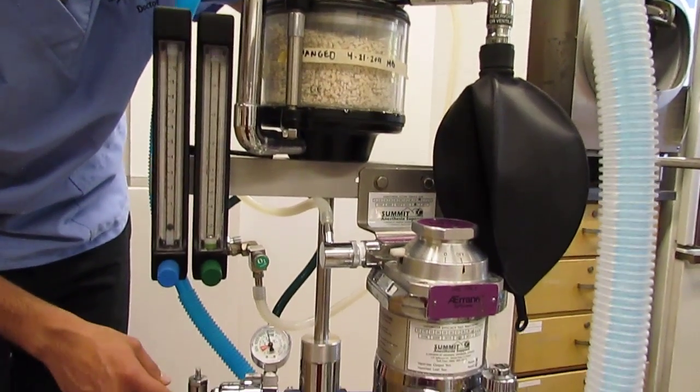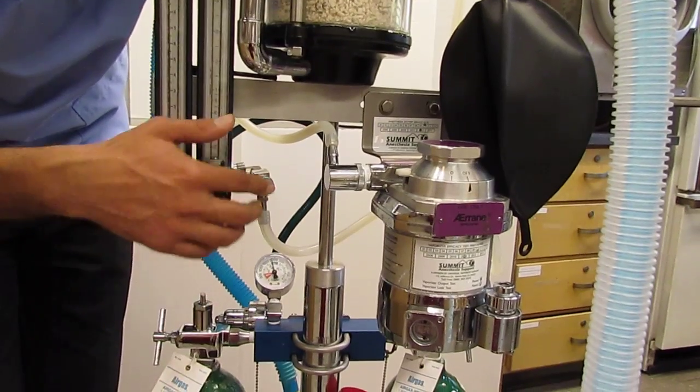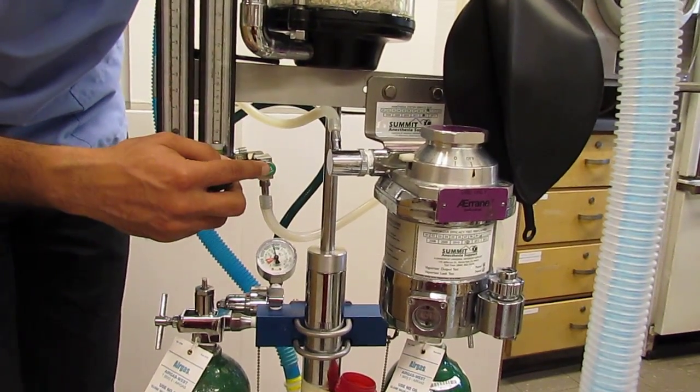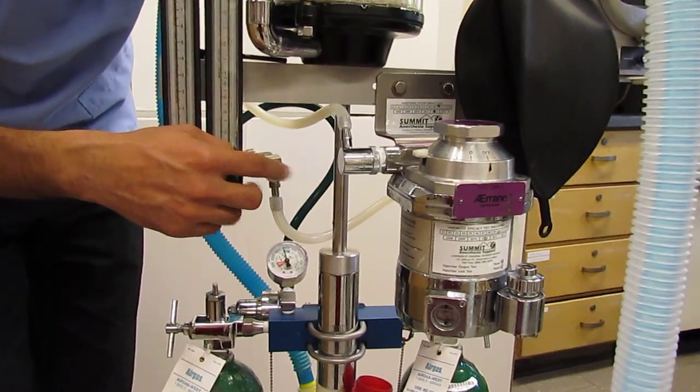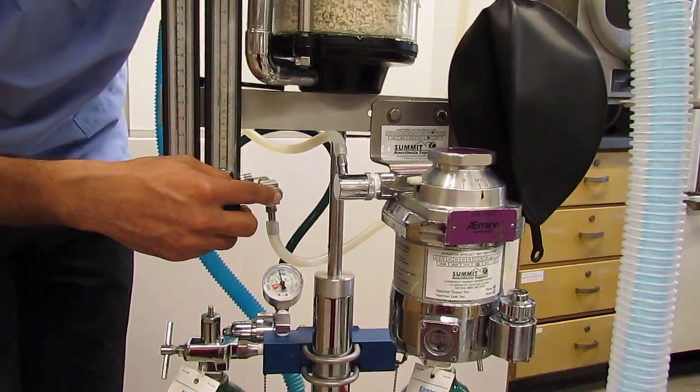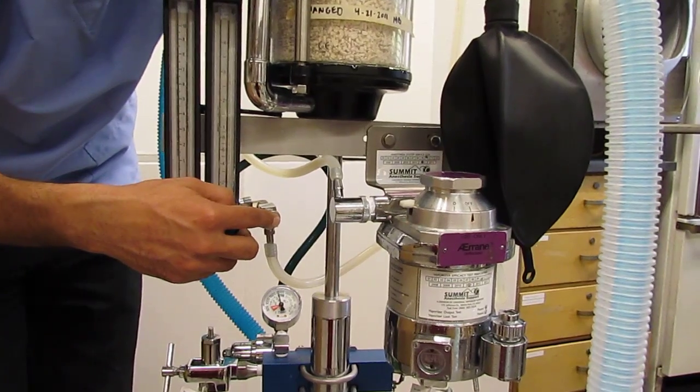Remember, all we've reduced down to is about 50 psi. When I push this, I am sending that pressure of oxygen at around 50, maybe a little bit less psi to the rest of the system, to the breathing circuit. I've got to keep that in mind.